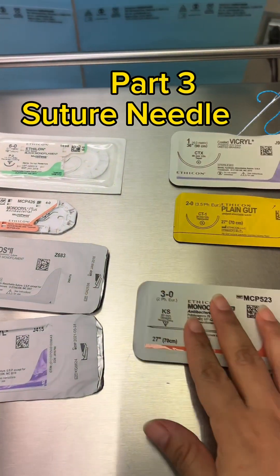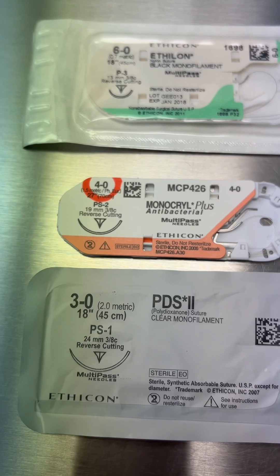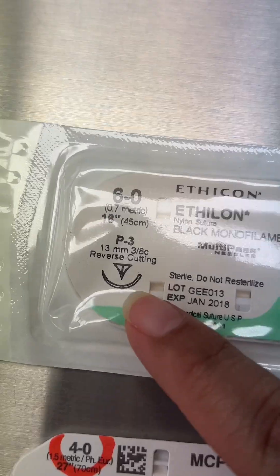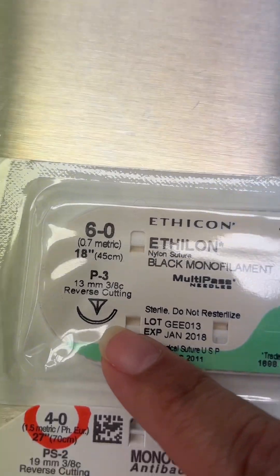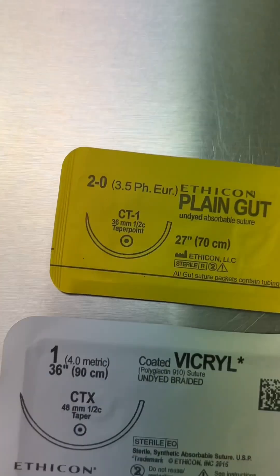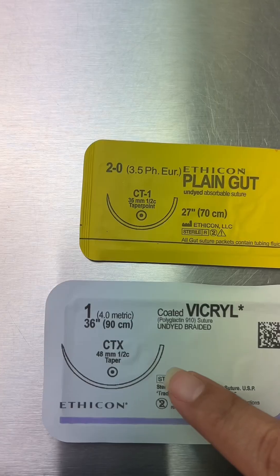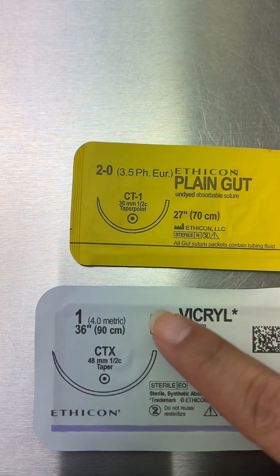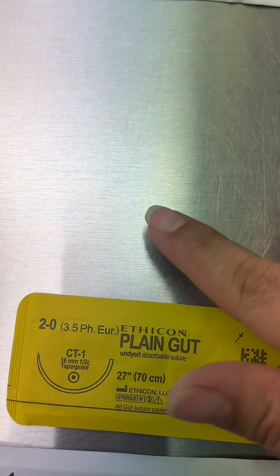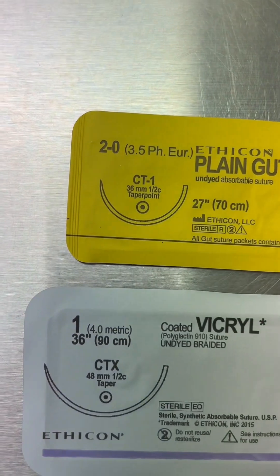Next, we have a couple of different sutures with different needles. Notice the PS needles with different numbers. As you can see, the higher the number, the smaller the needle. Same thing here with the CT needle. CTX is extra large, CT1 will be smaller, and of course a CT2 will be even smaller than a CT1.